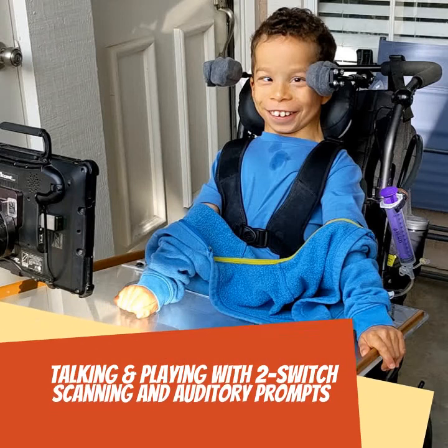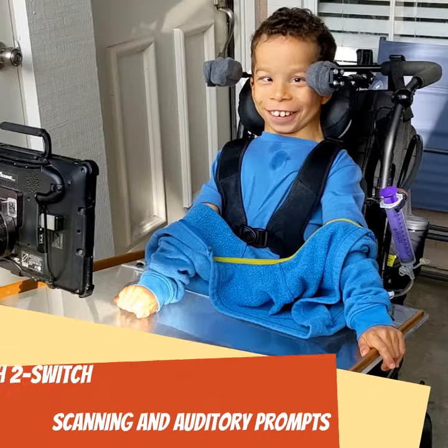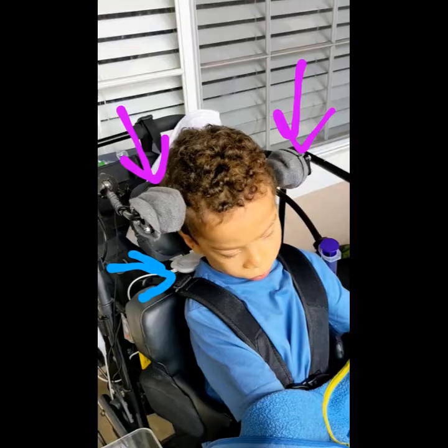This is Tyler, and he's going to show us how he uses two-switch step scanning with auditory prompts to control his communication device and a really fun toy. Let's take a look at what Tyler's setup is.